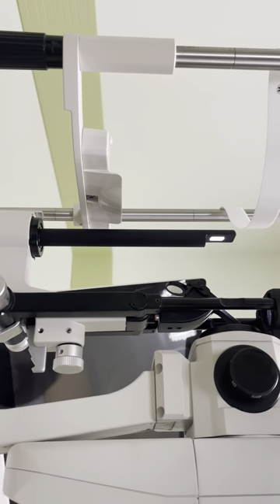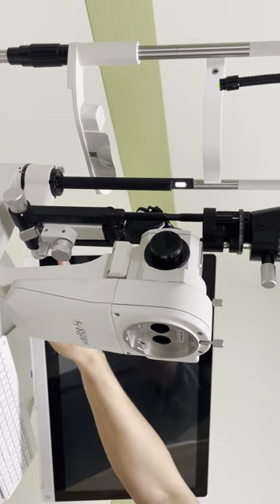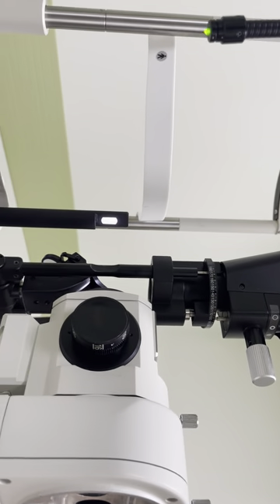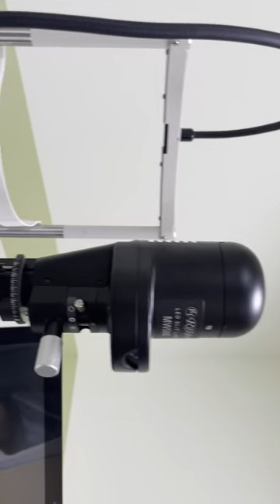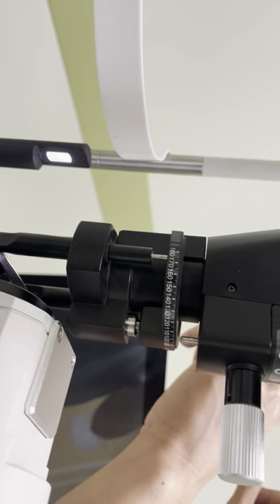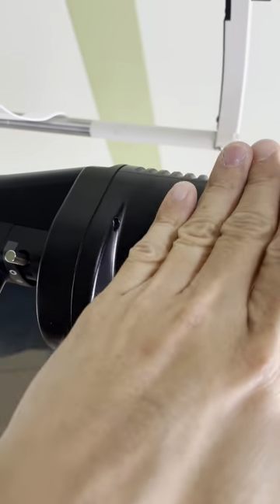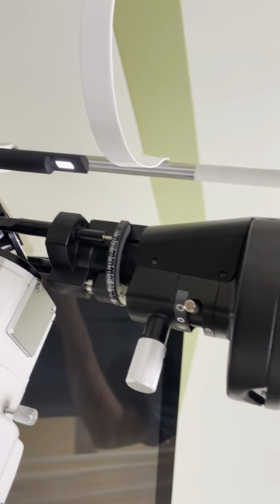Loosen, tighten, tighten back — don't go too tight, just hand tight. Don't go all the way tight; just enough so you can still open it. For the slit, it should close equally — if it's not equal and it's closing to the left side, you need to adjust the four screws here, loosen either left or right. Minor adjustment — try and error until you get a nice center.